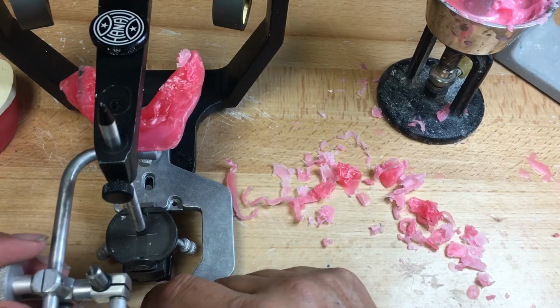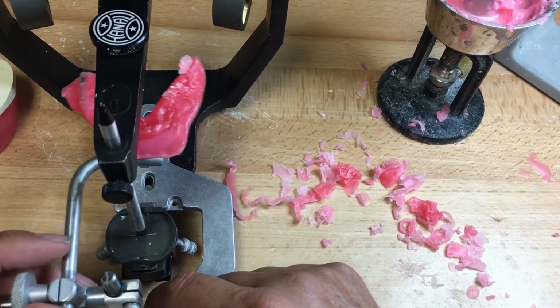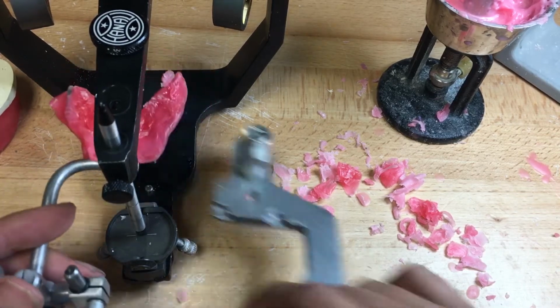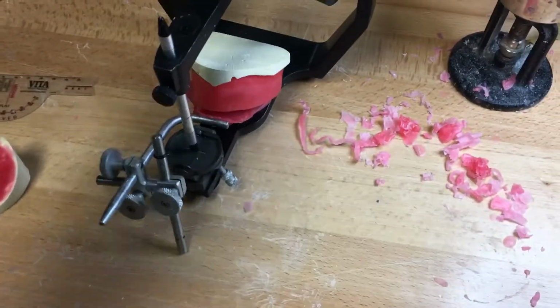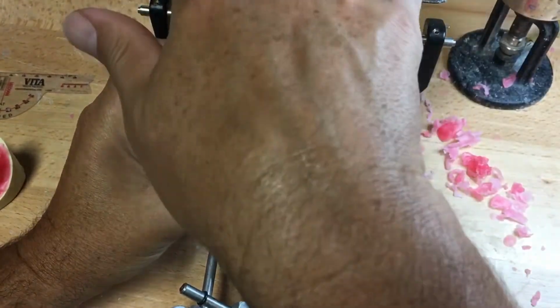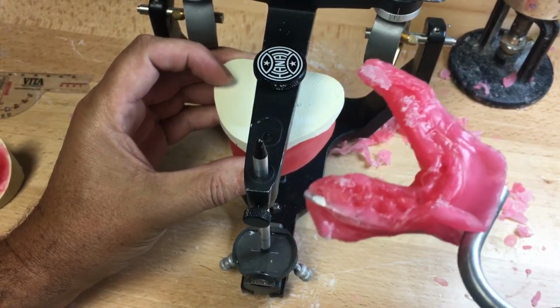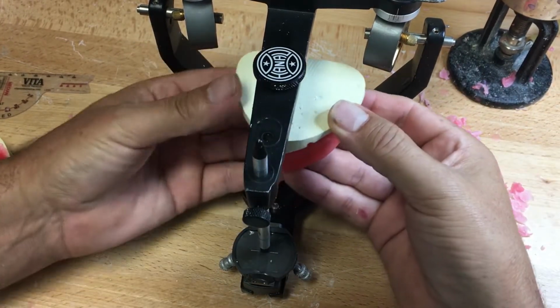And the transfer jig is used to transfer the facebow record from the spring bow to the transfer jig to the articulator. What is it doing? It is transferring the position of the maxilla in relation to the condyle. Let's move this up a little bit higher so we can see what's going on here. Transfer the maxilla in relation to the condyles. Now, if we don't have a facebow record, which is our first of 3 registrations, then we have average value mounting.